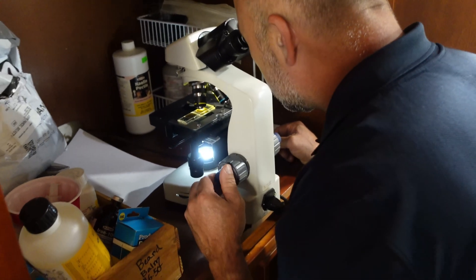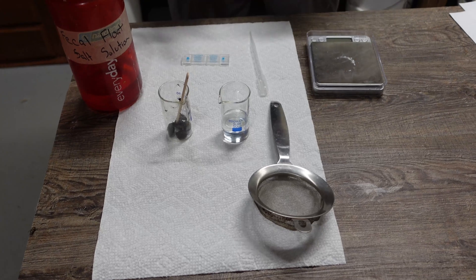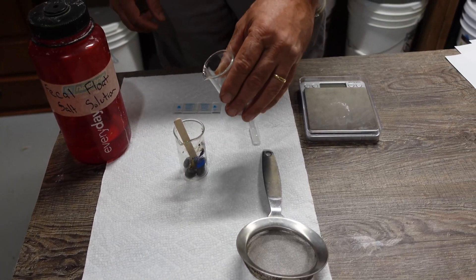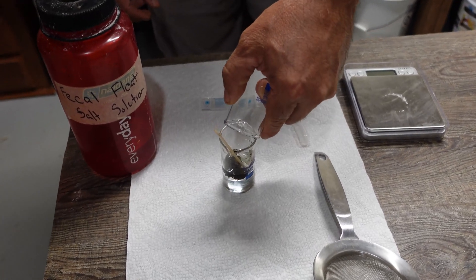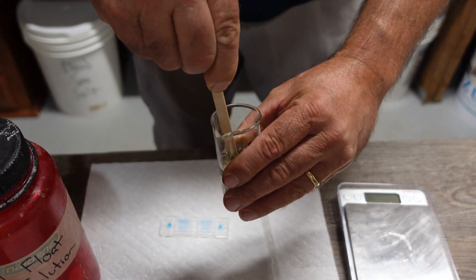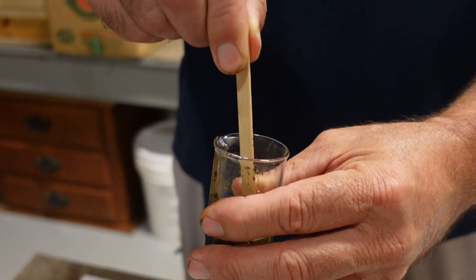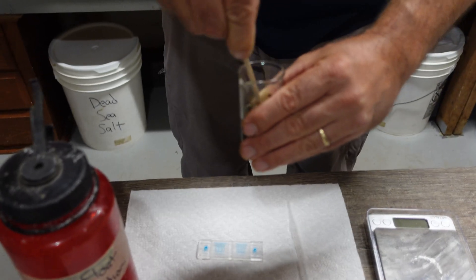For this technique, what we're going to do first is take the 4 grams of feces and add the 26 milliliters of the salt solution. Then we're going to use this popsicle stick — tongue depressor, whatever you want to call it — and chop up all the pellets to get it to mix really good and break everything up.